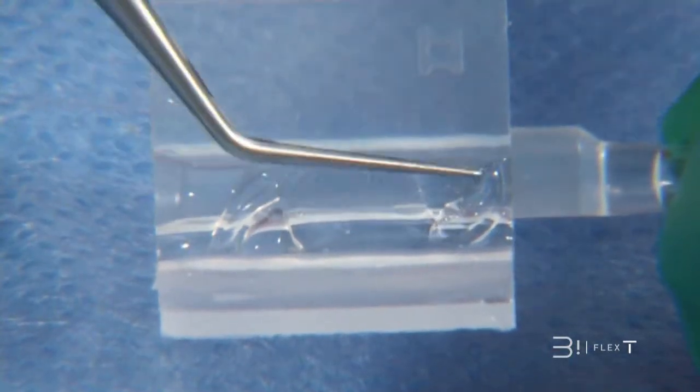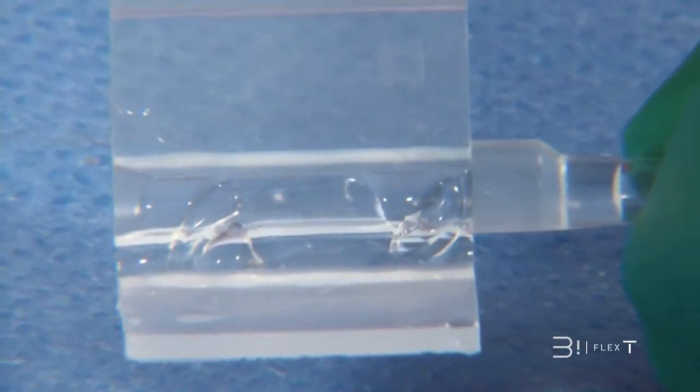Secondly, that the distal haptics are not too close to the cartridge entrance to avoid the plunger capturing them.